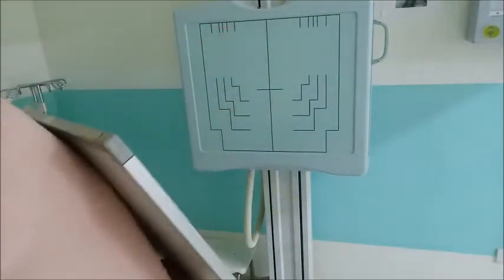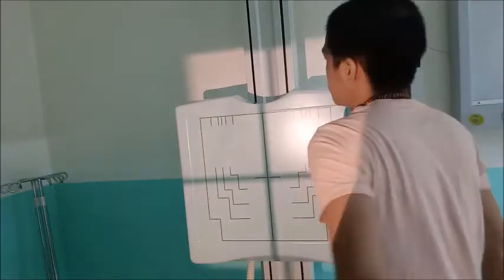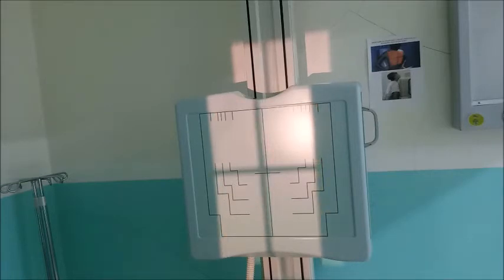With a 14 by 14 cassette, for example, this is the chest of the patient, and then you are exposing the superior abdomen, which is not necessary, and the gonads of the patient can also be exposed. That's why it is malpractice for our profession. And then the neck and the head would also be exposed. The target is only the chest, but your collimation includes the head of the patient. Again, malpractice for our profession. Whatever the size of the cassette, that should be the size of your collimation. Okay, move.